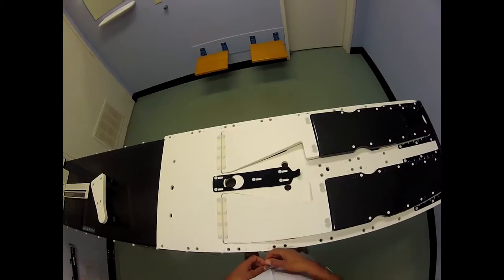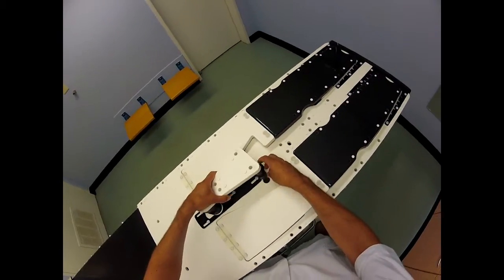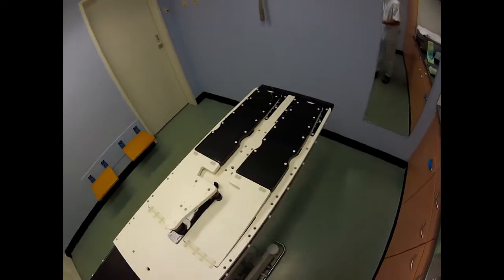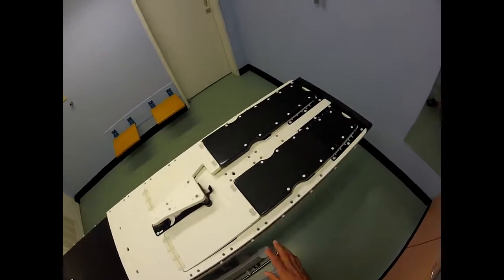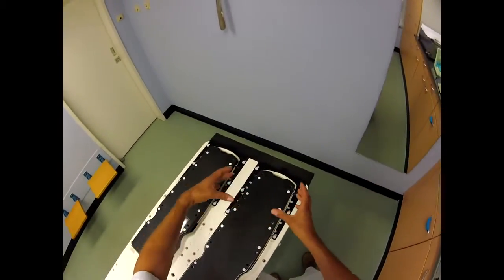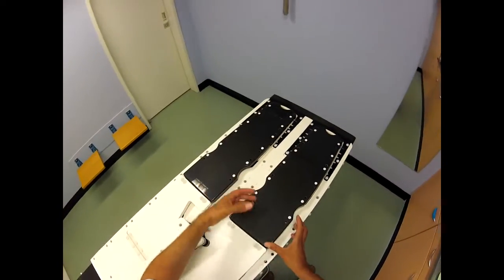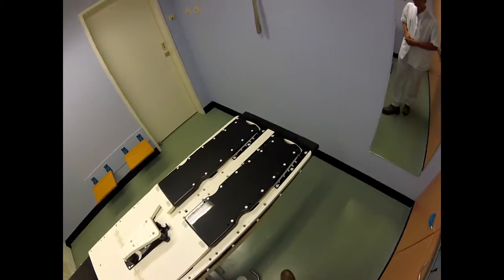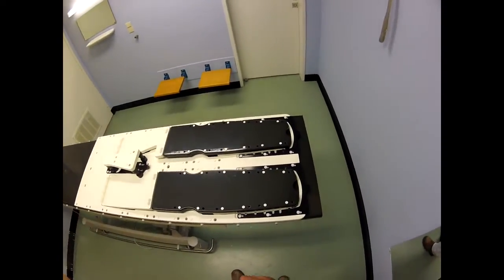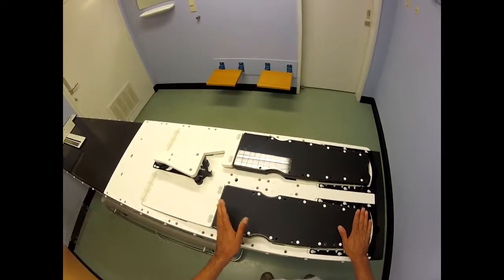The people from MicroMedics say you can use this and they give you some simple pre-cuts — you can fix the feet over here and the knee over here. But of course I don't think it's that simple, and you always want to try to do things a little bit better.